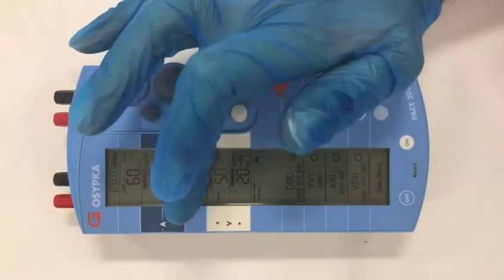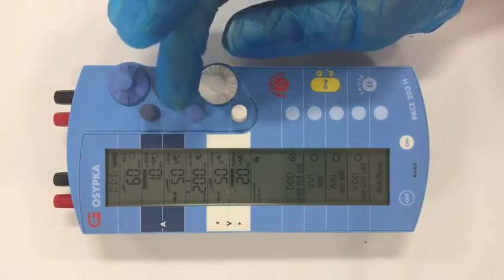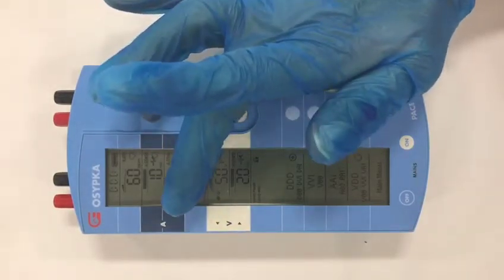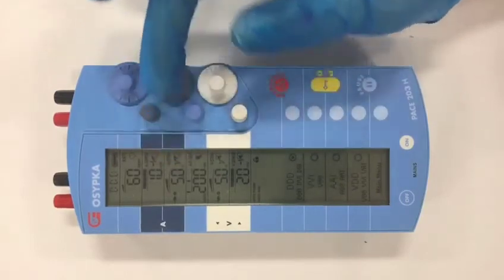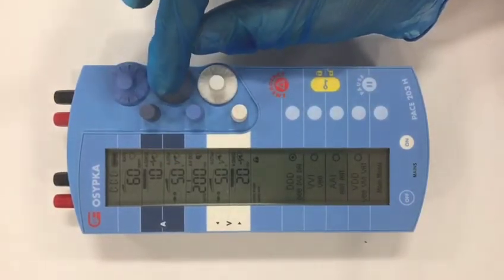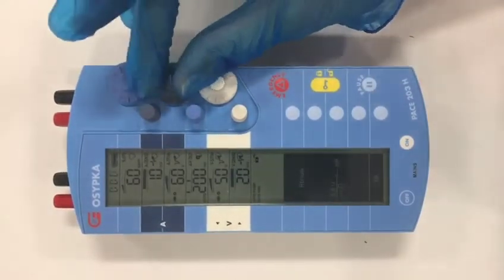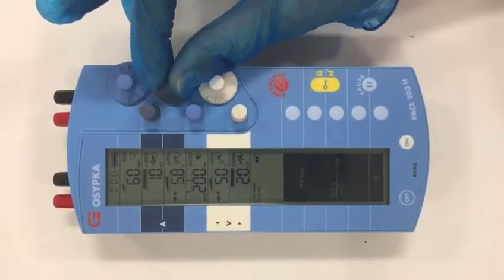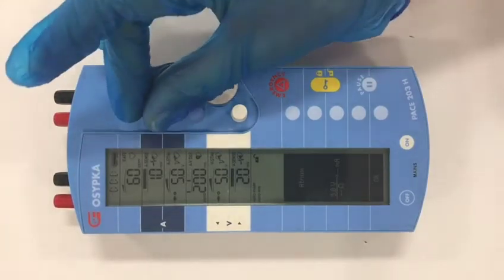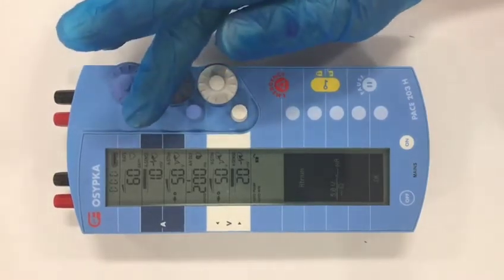The numbers in the blue panel are parameters related to atrial activity. The bottom one, where the yellow flashing light is, is the output, and that is this control here. You rotate the control in order to change it — if you want to increase the output, you just rotate it. The other control is the sensitivity, and invariably for most patients this is set at 1 millivolt.